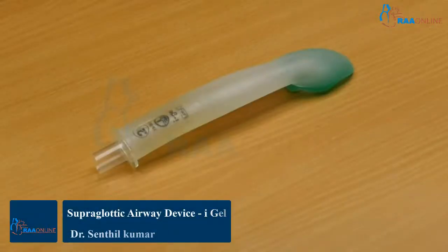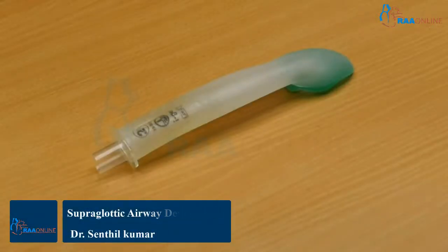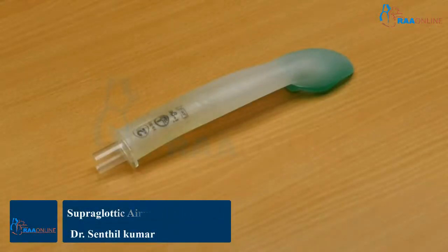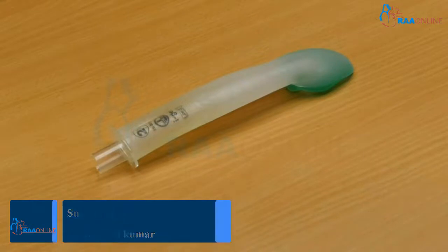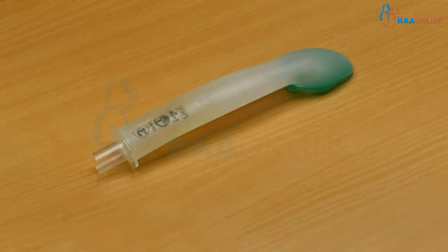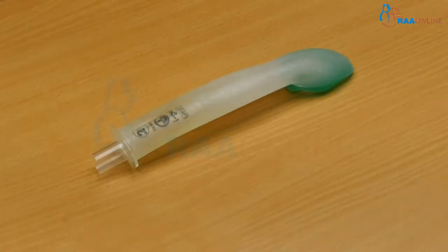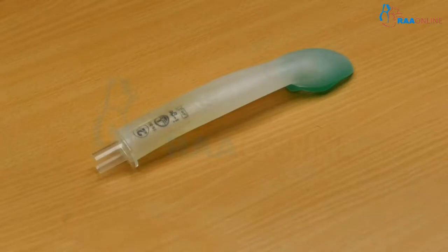Good morning, everyone. In this session, we are going to see one of the very important inventions in the part of supraglottic airway devices, that is IGEL.